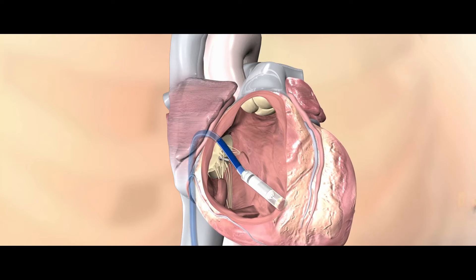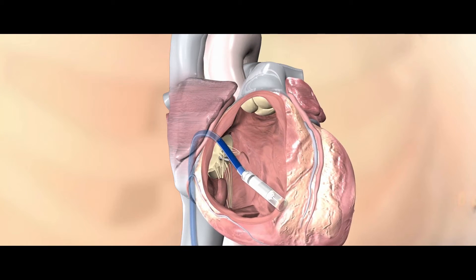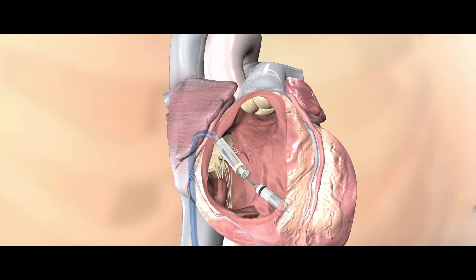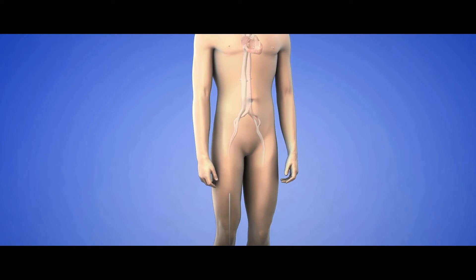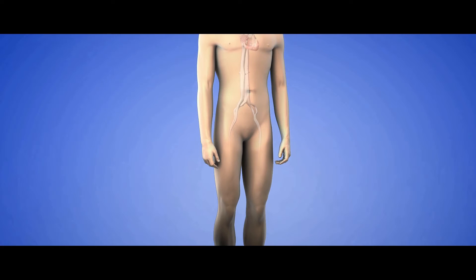The size of the Micro is actually one-tenth the size of a standard pacemaker. To be able to implant the device in a self-contained way into the heart and not take up much space is a dramatic step forward.